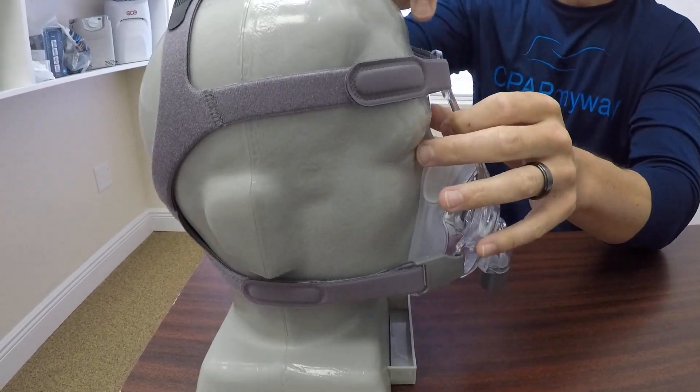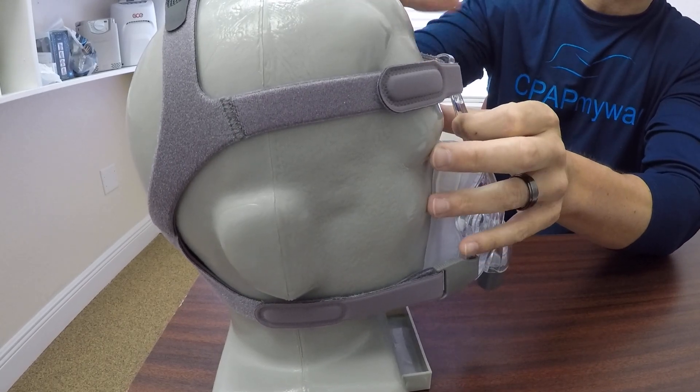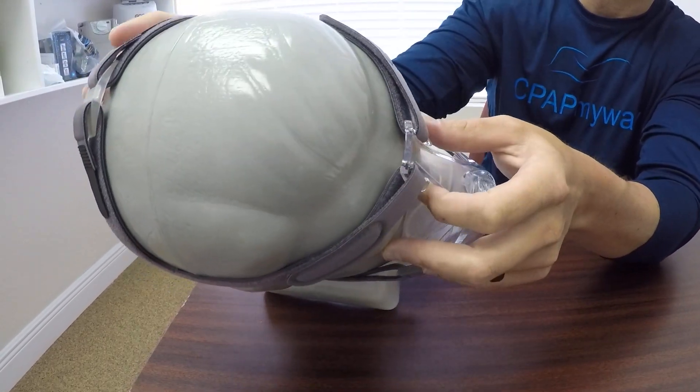You'll also notice that on the top here, it may not even touch the forehead. Some people's concern on this mask is, I really don't want something touching my forehead. Well, with this particular mask, you can see it actually has a little bit of a gap there.